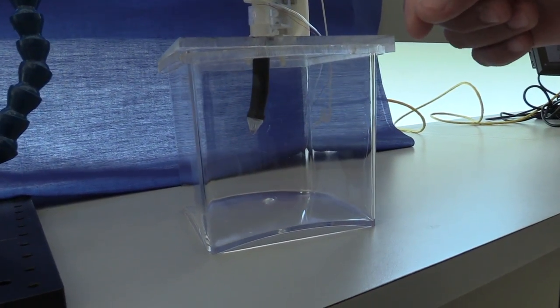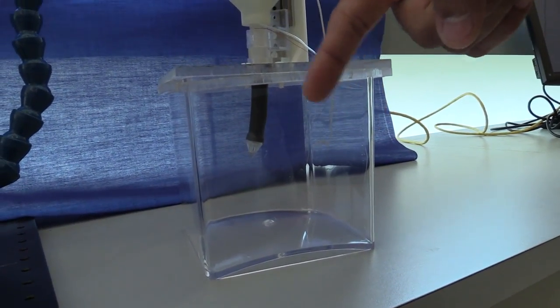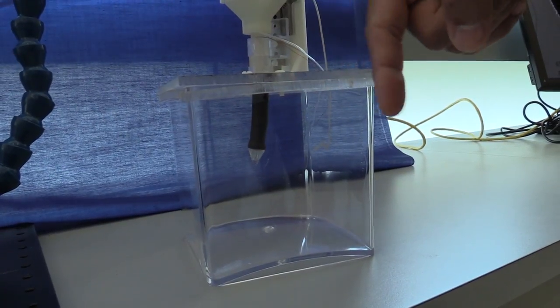So for example, if you introduce the robot inside, and then you can see this robot, as you can see here, it's bent and it's moving. So you can essentially get to the entire tumor and use the MR image feedback, magnetic resonance imaging, and be able to do the whole thing with much more dexterity than what is currently possible. So send a robot into the brain that is able to sweep from side to side to have more flexibility. And it is 3D printed. So this can be patient-specific, and you can actually 3D print the entire robot.